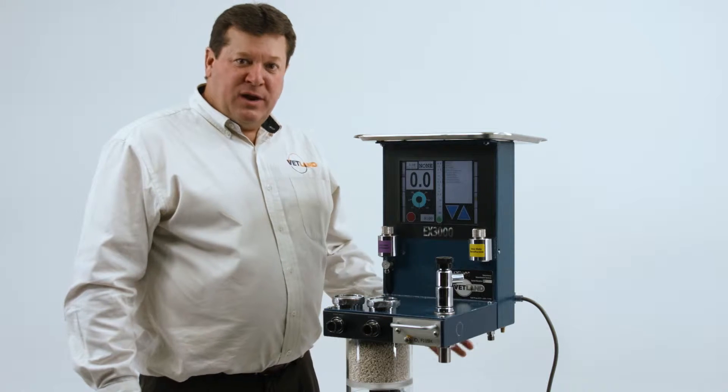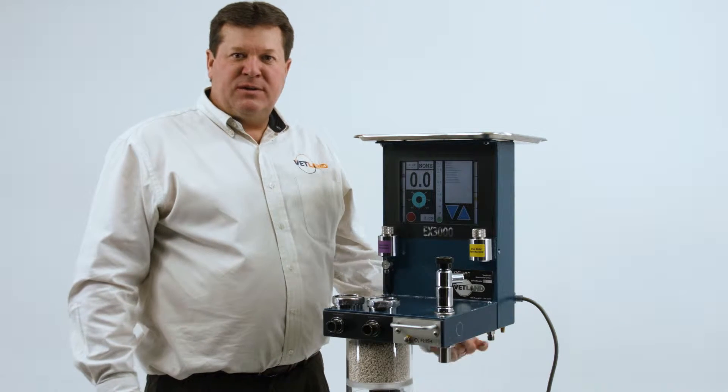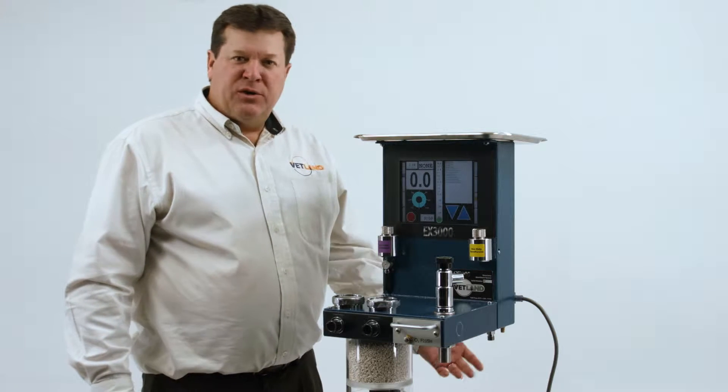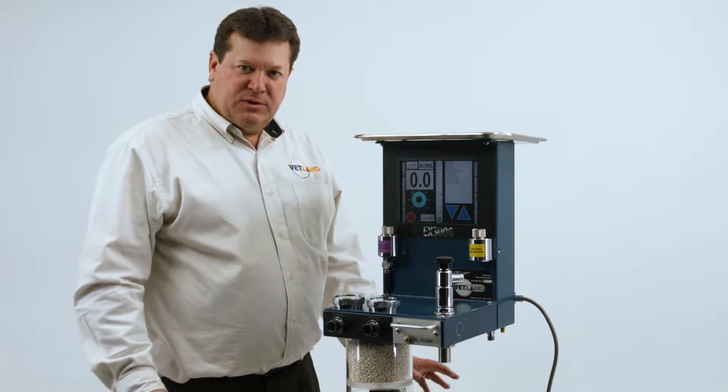We're going to demonstrate how to drain the vaporizers on the EX3000. If you ever have to put the unit in storage or ship the unit it needs to be drained of the anesthetic drug and we're going to demonstrate that now.